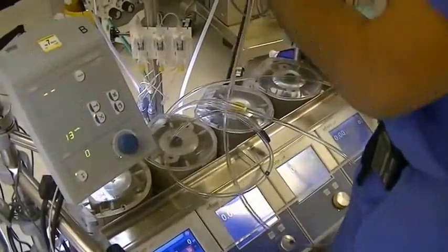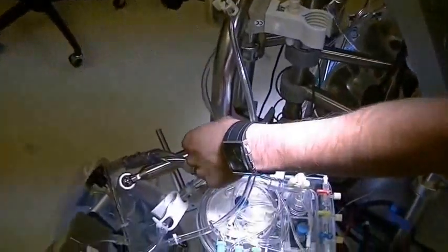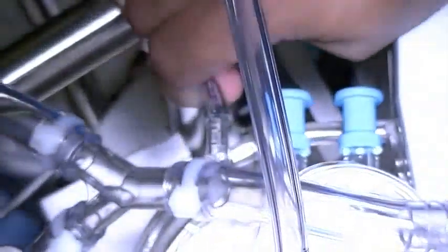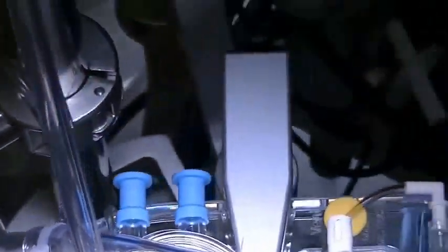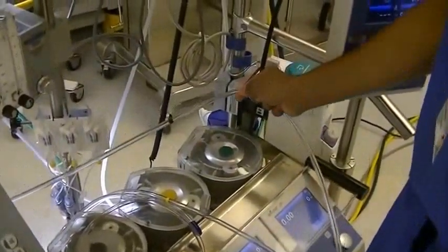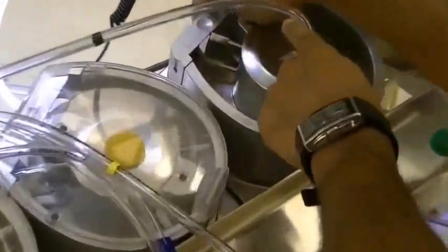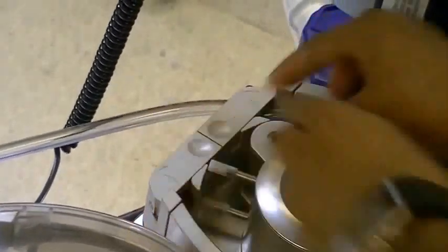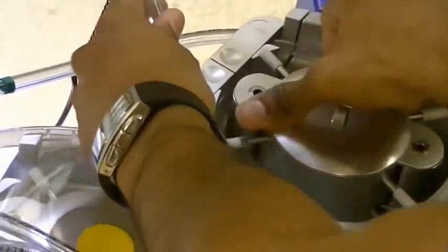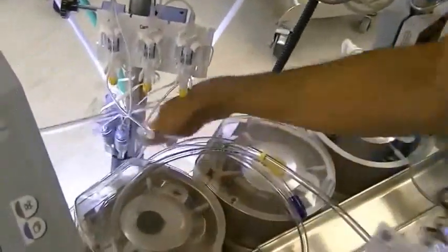When you are setting this up, I would have it connected first. You want to go around the entire holder and go around, otherwise you might have trouble when you are tearing down. Hook it up, and then when you set up, just trace the order that you have it in when you put it into the roller head, making sure that the outlet will be on the correct side. That is it for the green.